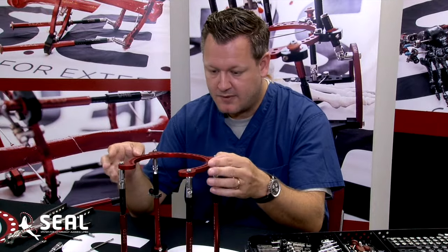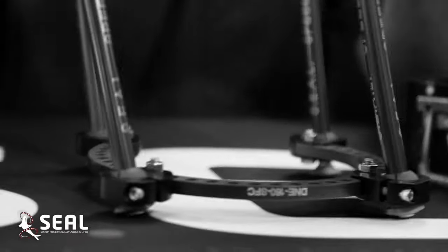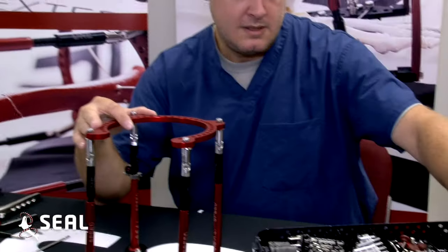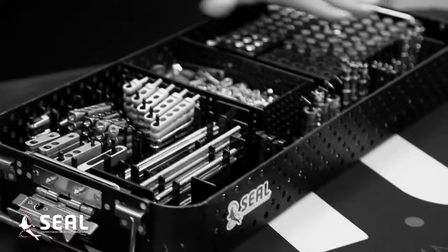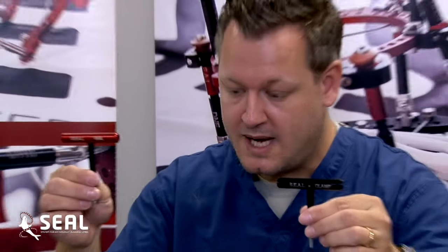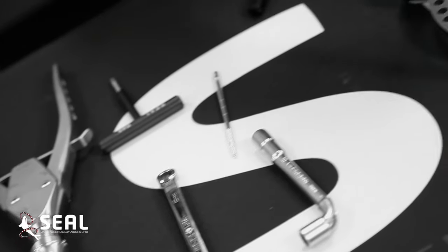For the discussions involving the Speed Frame, as we reviewed earlier, the Speed Frame has a multitude of versatility — simplicity to the intricacies of the complexity of our patho-structural anatomy. The frame has much simplicity, but within that simplicity, all the instrumentation that you get with the frame has every involved piece of material used in a large external fixator: different size wires, different size pins, olive and smooth. You have your universal bolt tray and system, a multitude of different posts, shapes, sizes, and lengths. Along with that, you have your color-coded SEAL clamps — black for the structural clamps, red for your tightening struts — along with our universal wrenches: the curved wrench and the open wrench. You also have your classic tension devices.